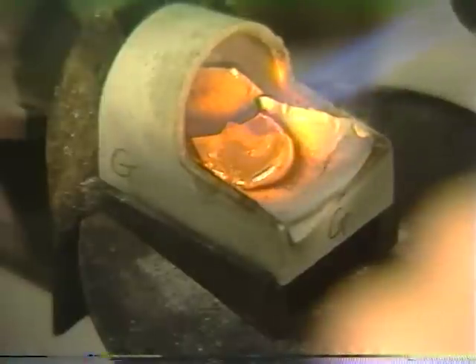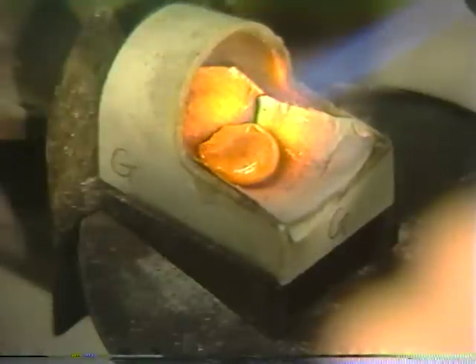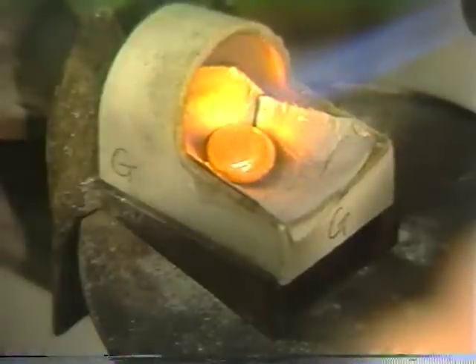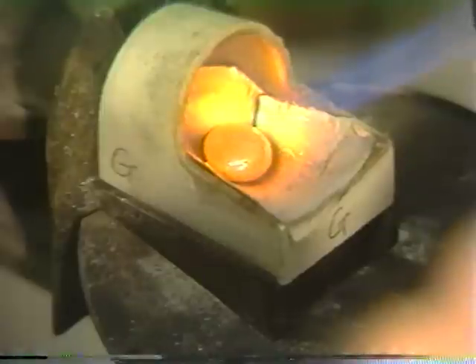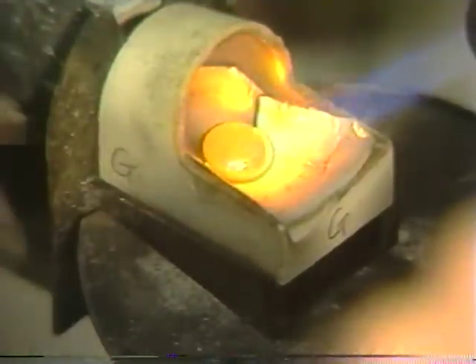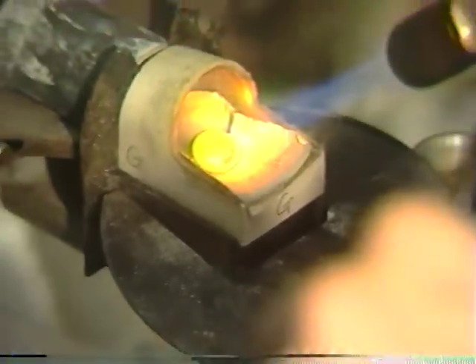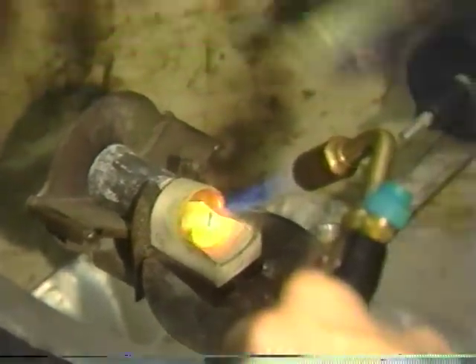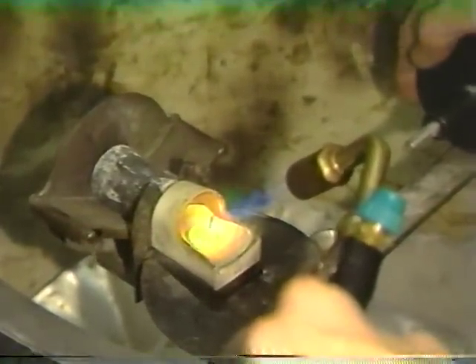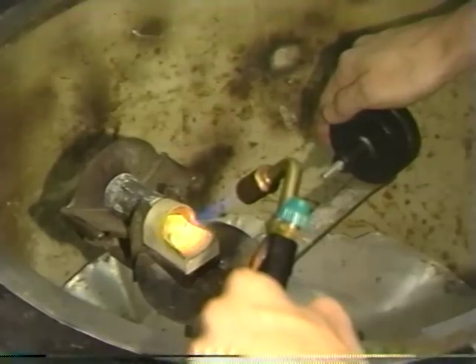At this time the melt is almost ready and the ring can be placed in the cradle. The tray is then slid into intimate contact with the ring — make sure that this is contacting the ring. The pin is dropped but the machine is held in position, then carefully and gently released to make the casting.